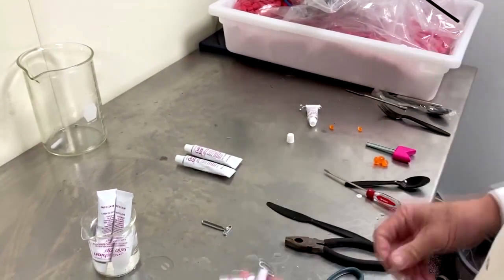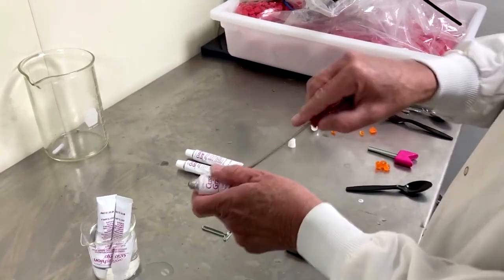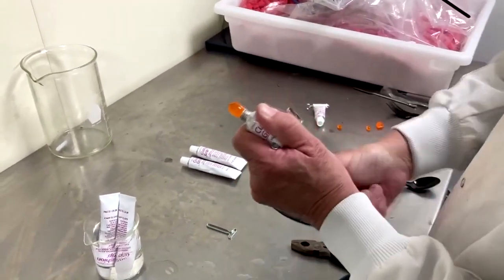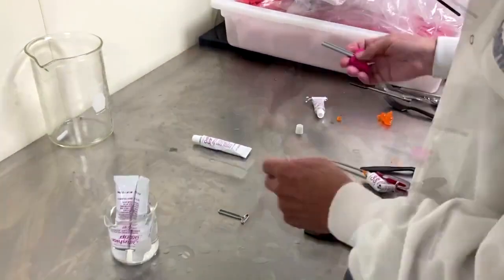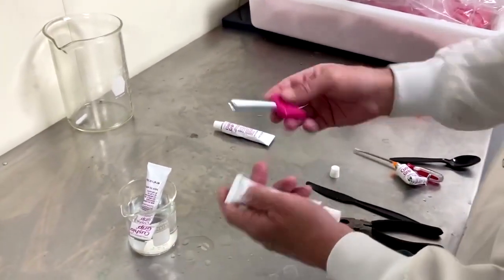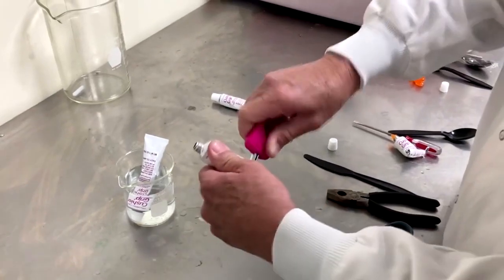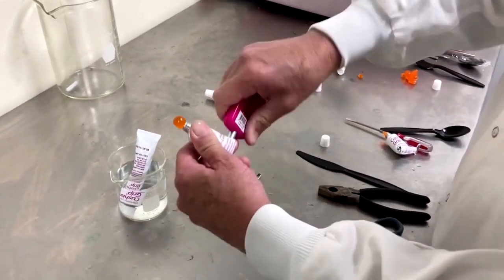In addition to these devices, you could also use a screwdriver. Anything that provides some leverage that you can add some length to this key and get it out. You could also use these different types of keys — they are available on our TikTok and Facebook. This key is larger and longer, so it provides a lot more leverage.